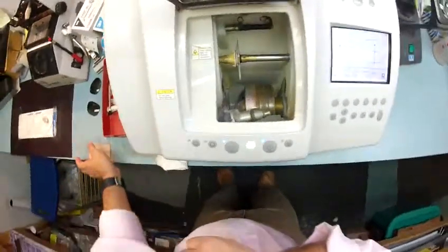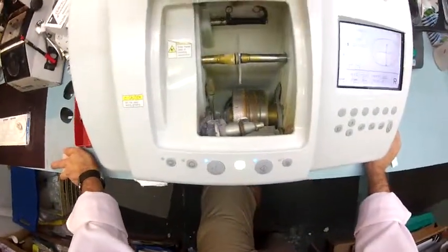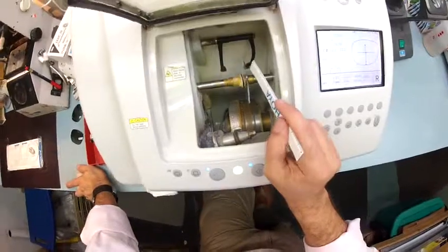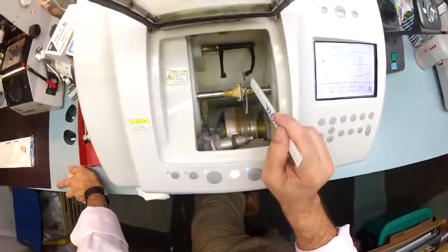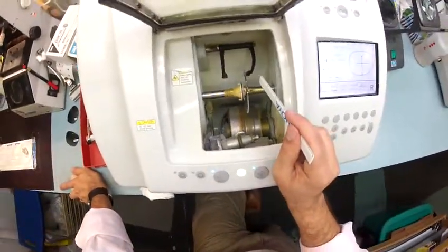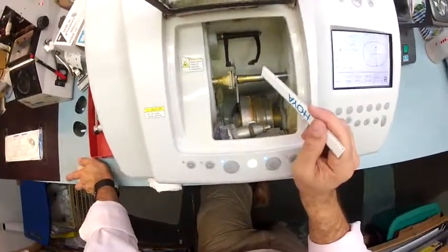I'm going to put your lens into the chuck and hit start — I like to call it 'the Charles,' because I don't know the machine well enough to call it chuck, even though we spend 12 hours a day together. The calipers are going to come down and trace the back surface of the lens, the concave surface closest to the eyelashes, then move over and trace the front convex surface, measuring the thickness of the lens to know exactly where to place the bevel.